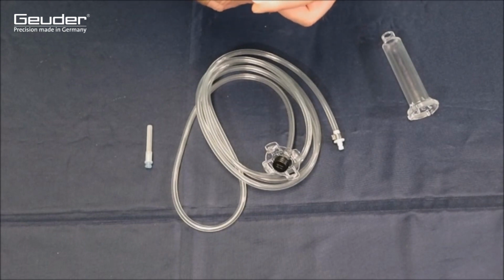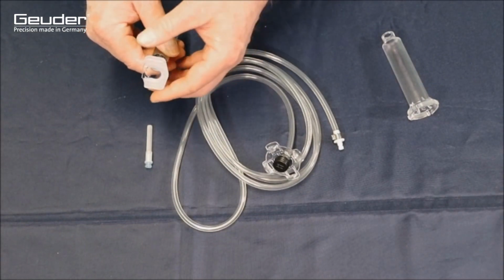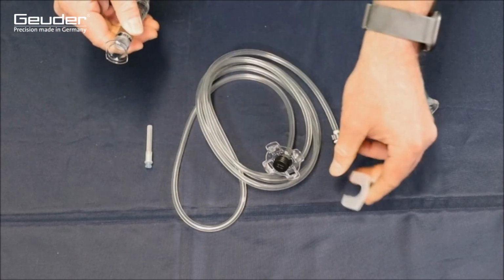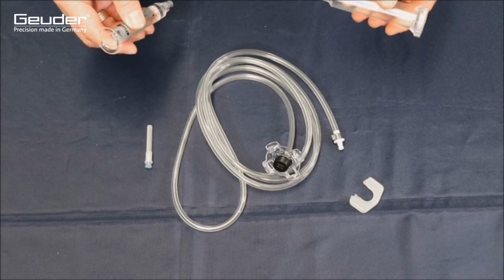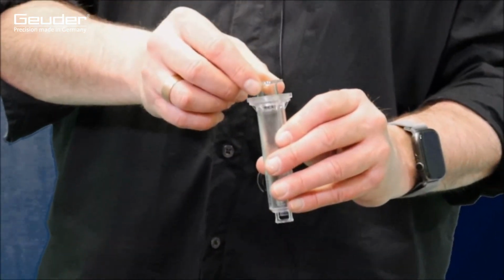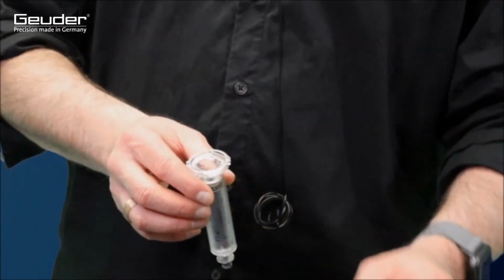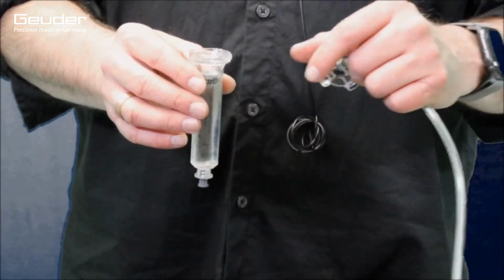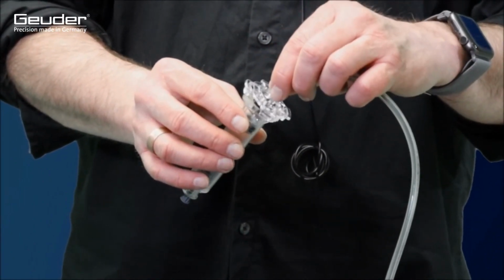The plastic element is first removed from the silicone oil syringe, then the syringe, taking into account its wings, is inserted into the safety cartridge. The screw cap of the tubing system is then placed on the cartridge and screwed on with slight pressure by turning it clockwise. As soon as a click can be heard, the locking has taken place and can no longer be released.